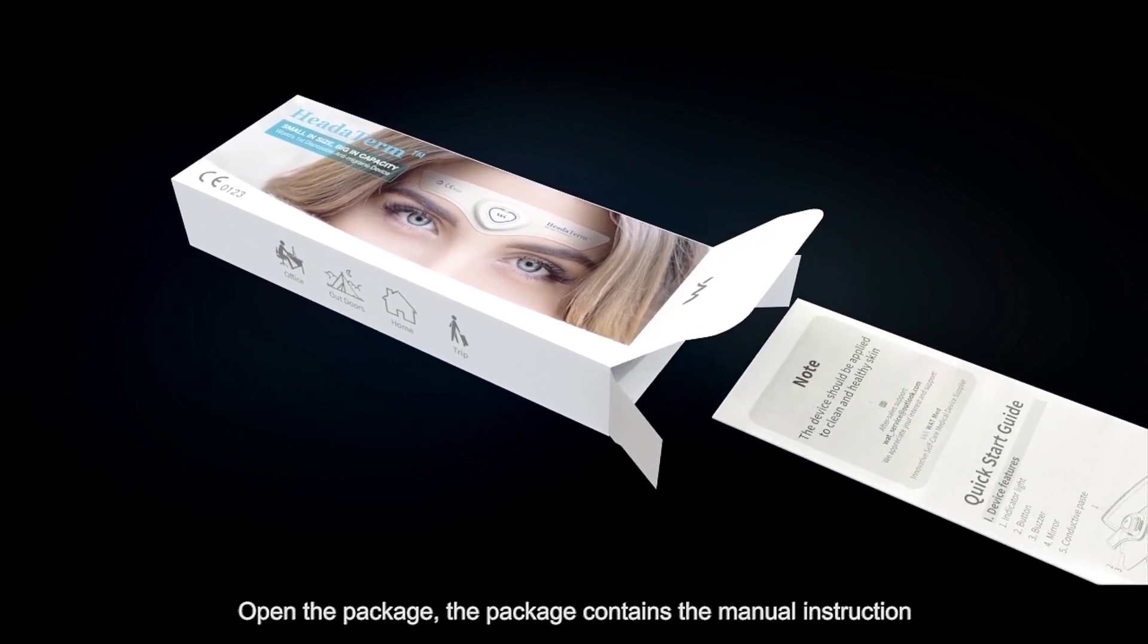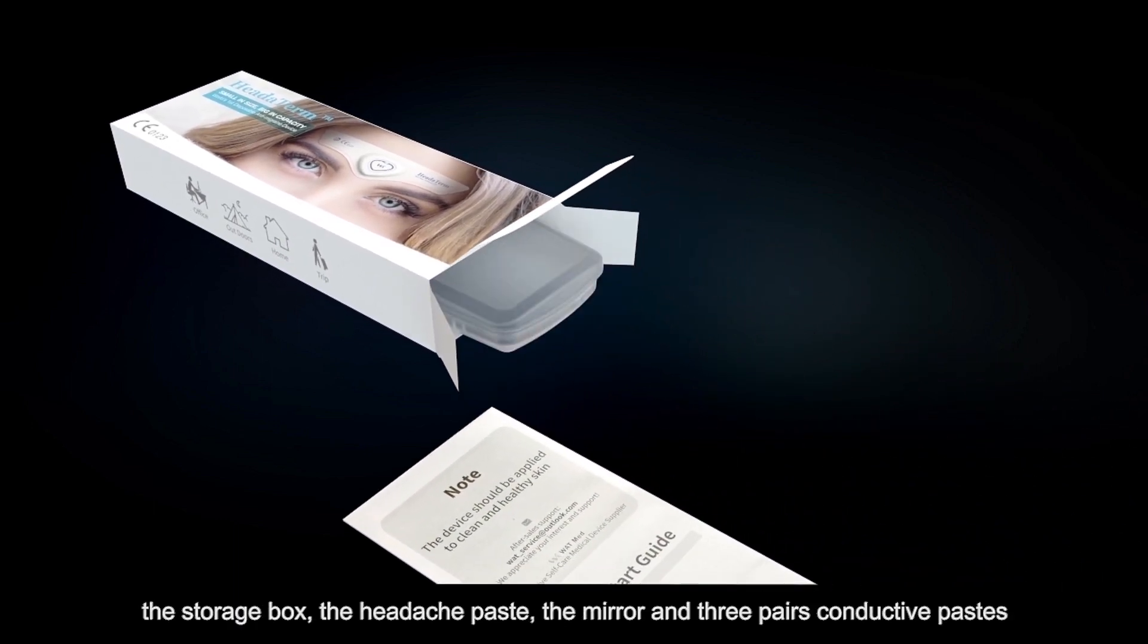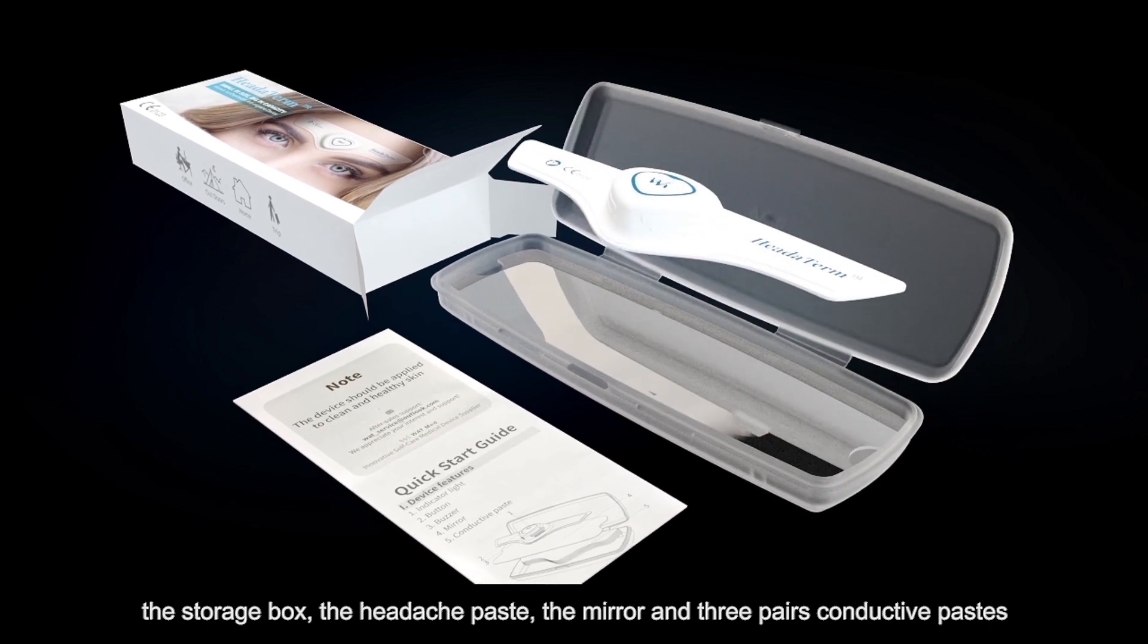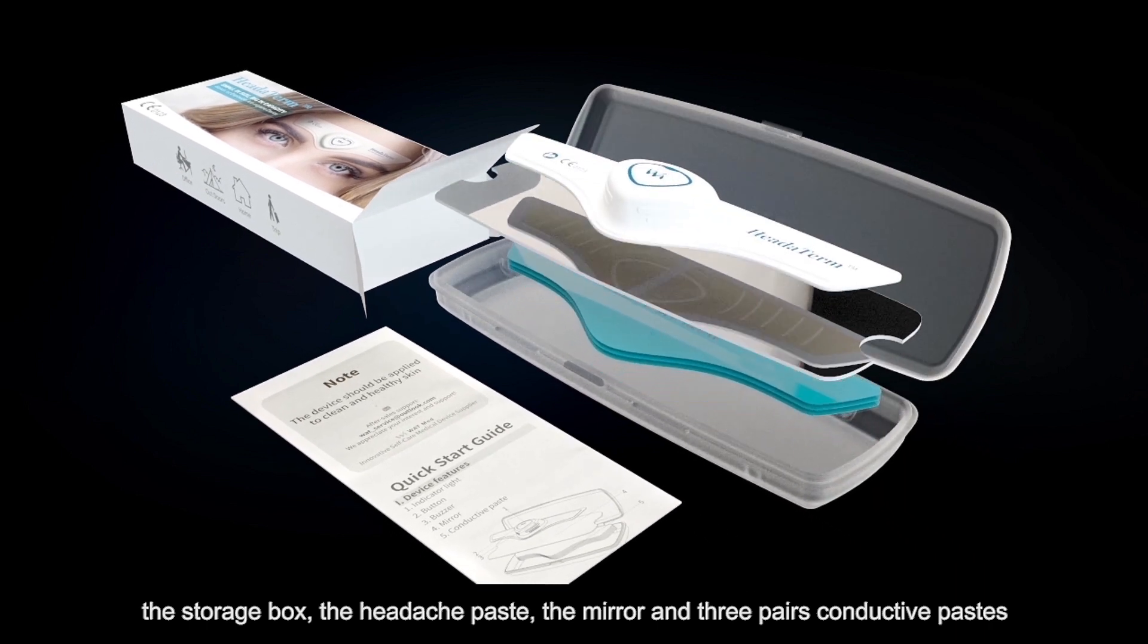Open the package. The package contains the manual instruction, the storage box, the headache paste, the mirror, and three pairs conductive pastes.